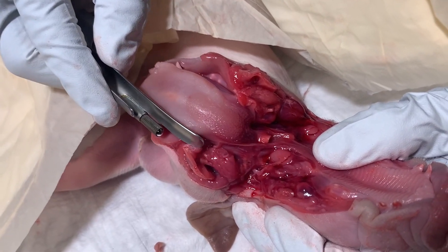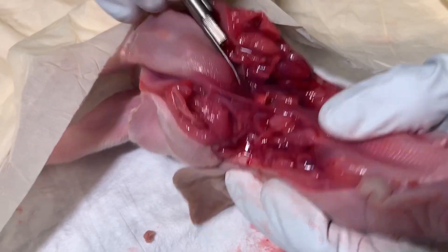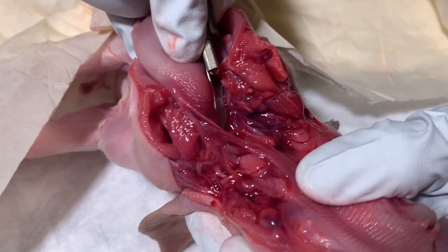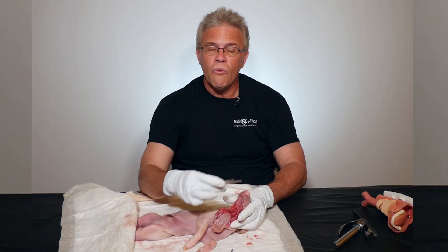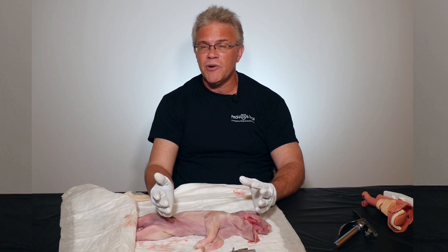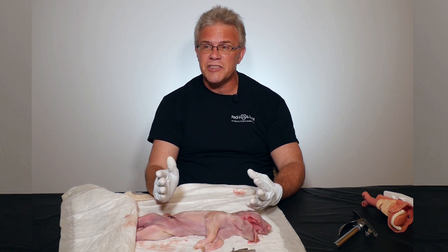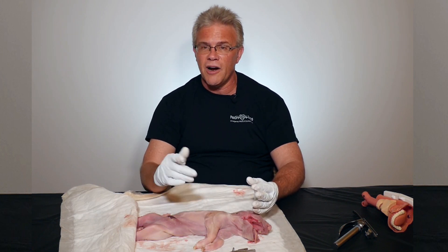Versus with a straight blade, you sweep the tongue to the side and instead of trying to find this super tiny infant vallecula, you simply take your straight blade, grab the epiglottis, pull everything out of the way, and there are the cords. On an alphabet soup exam, if you're intubating a baby the book says use the straight; for everyone else, use whatever you want. The moral of the story is: whatever you're more comfortable with is what you should use — either way the tube goes in the same spot. You just need to know how to properly use your tools to find the correct spot.